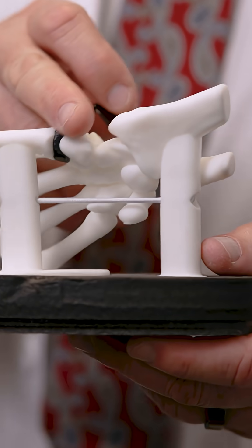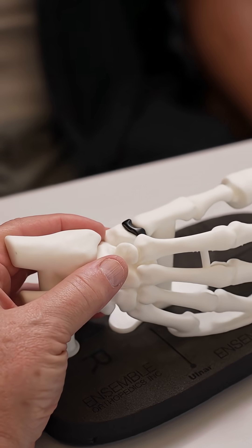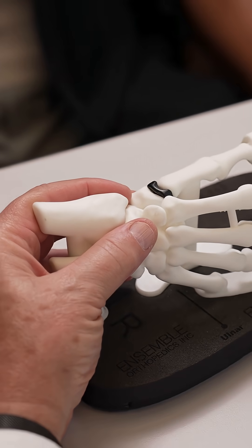As an implant for the CMC joint for resurfacing that articular surface, it's really ideal. It's the first one I've seen that's been very successful at having people get back to their functional activities with maintaining their strength without having pain.